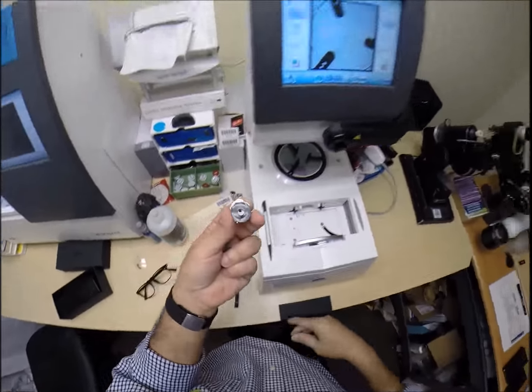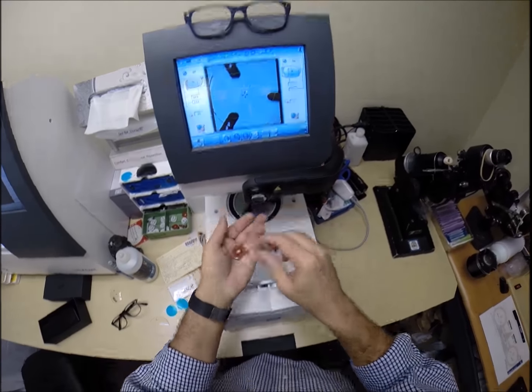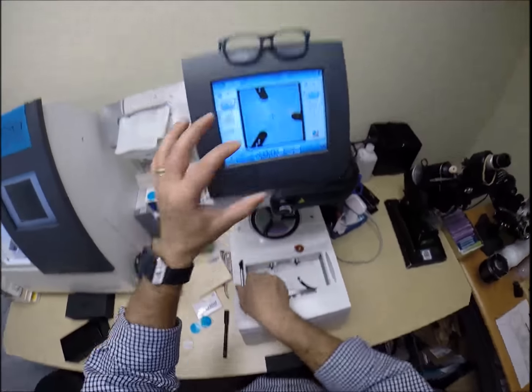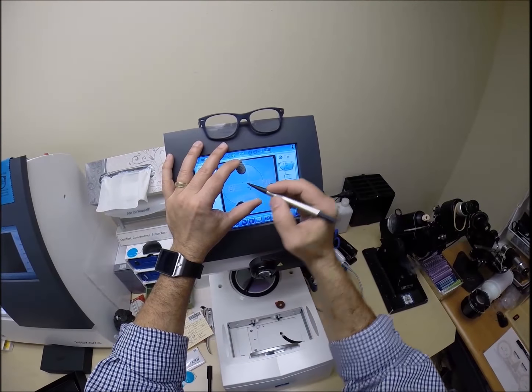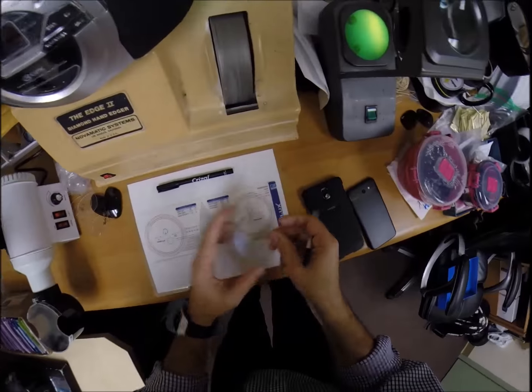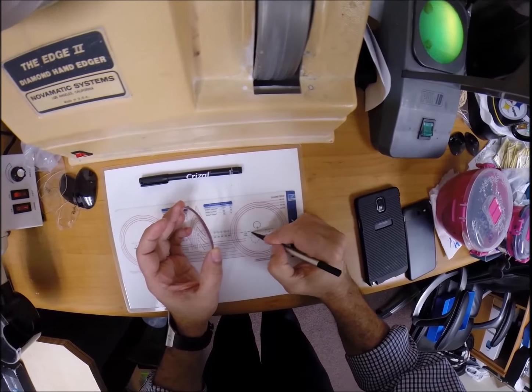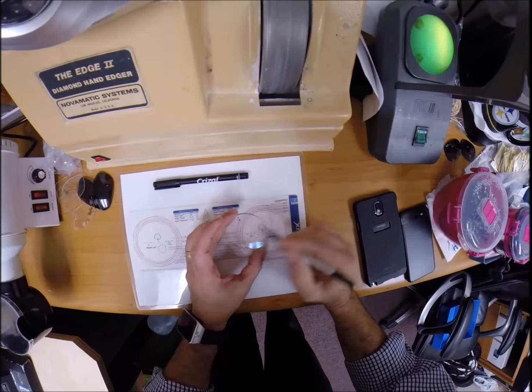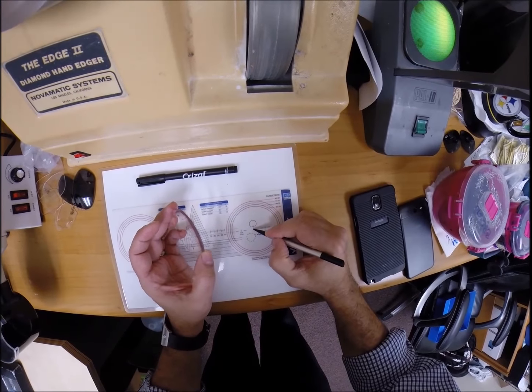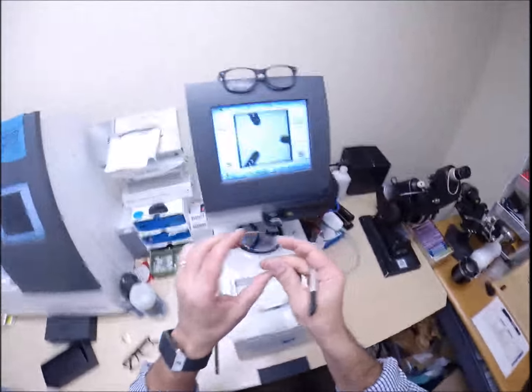Should you ever need lenses for this frame again in a couple of years, you had to mail it to me the first time, but in the future you can email me your new prescription. I am barcoding this into the computer so I will have the shape programmed into the database. You are now secret agent 448 - the 448th installment of my series of making a pair of glasses for everyone.